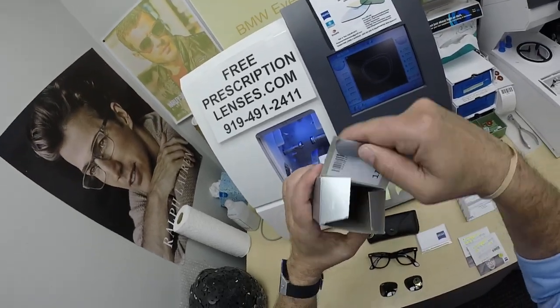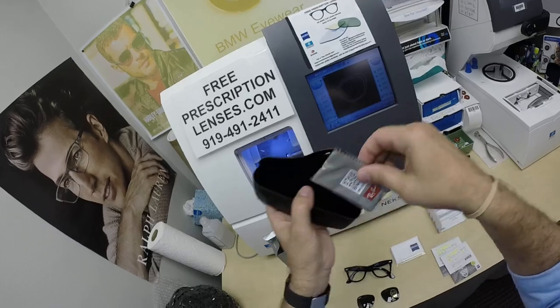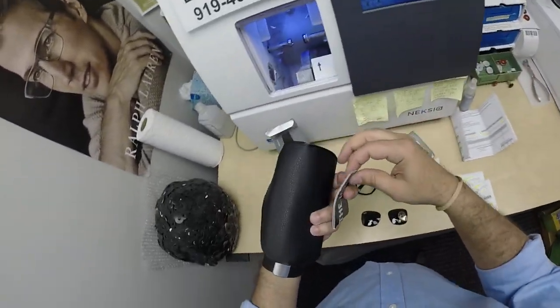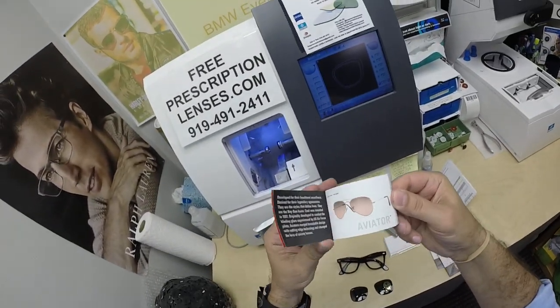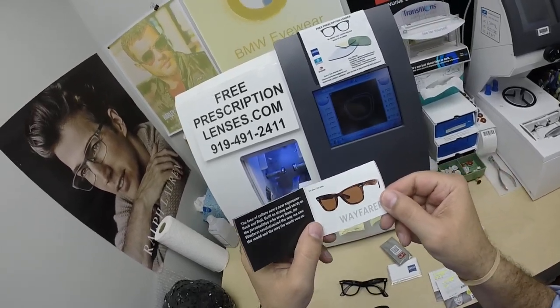It comes with all the accoutrements from Ray-Ban: the gift box, the soft fold-over Italian leather case, the Ray-Ban cleaning cloth with junk mail — I shouldn't say junk mail — which has that frame, look at that, the color right there being shown.